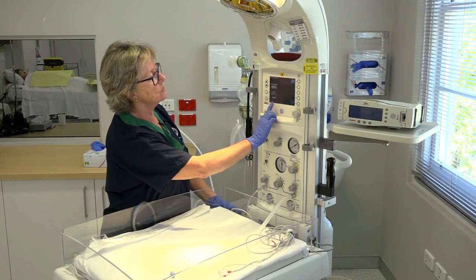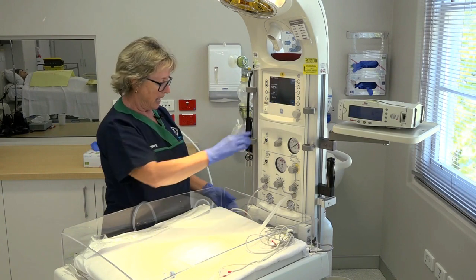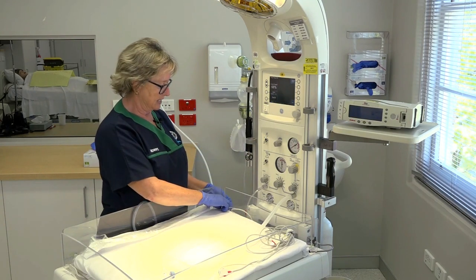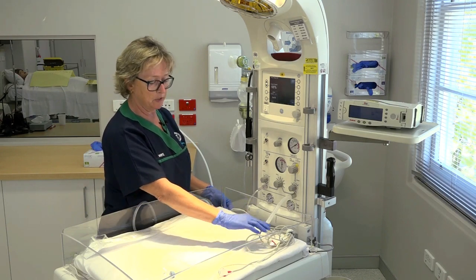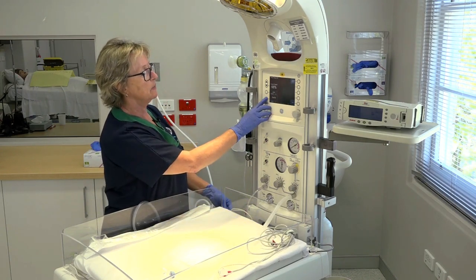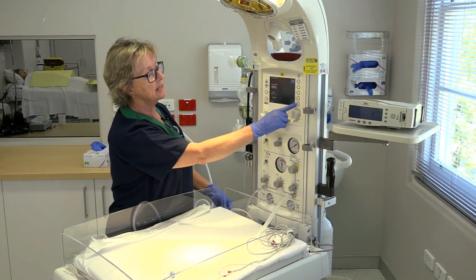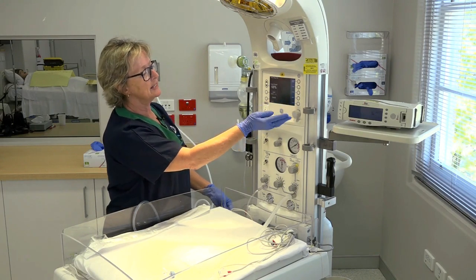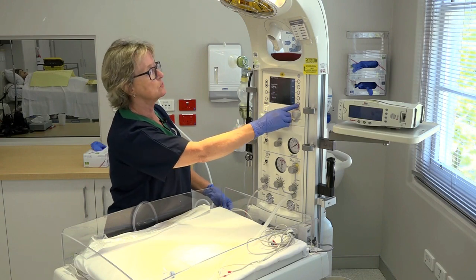The final things that are relevant on this screen are the oxygen saturation. This brand of cot actually has an inbuilt oxygen saturation probe — you've got it here, and when you're ready to use it you can turn it on. We'll just turn it off for the moment. The other buttons show trends and you can also set up your oxygen saturation targets.